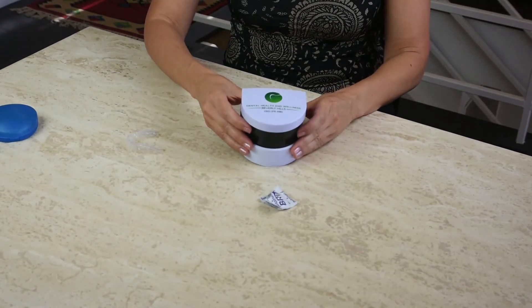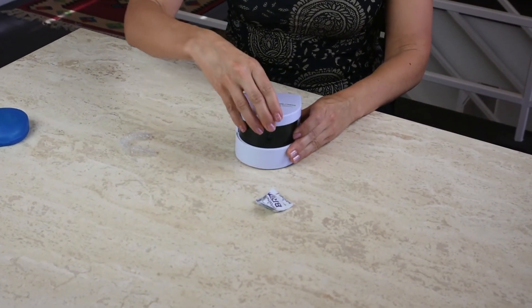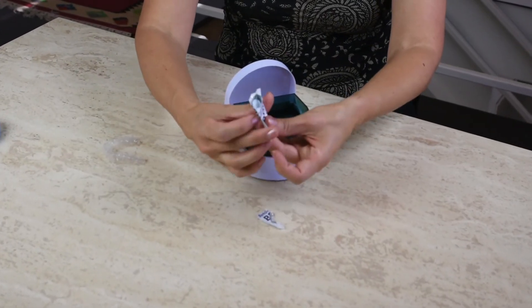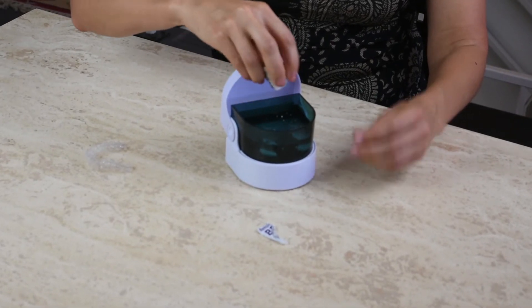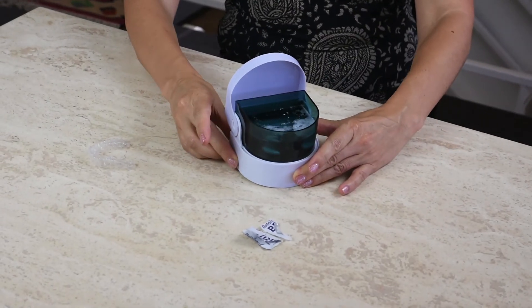So let me show you how to do this properly. Right here in front of me, I actually have an ultrasonic cleaner. The ultrasonic cleaner essentially is small — it could fit on your countertop. What you want to do is take an enzymatic tablet, drop it in the water, and you're going to see this bubbling. While it's bubbling, you can actually turn it on.